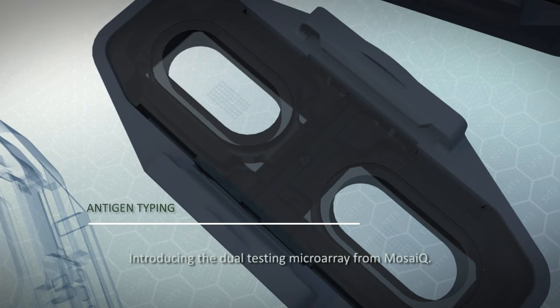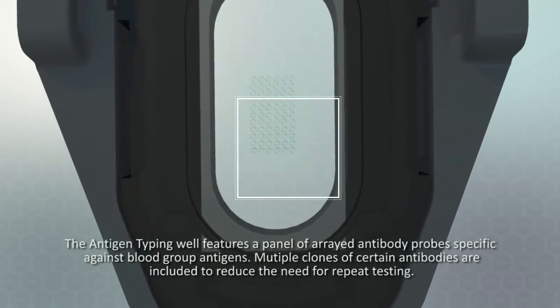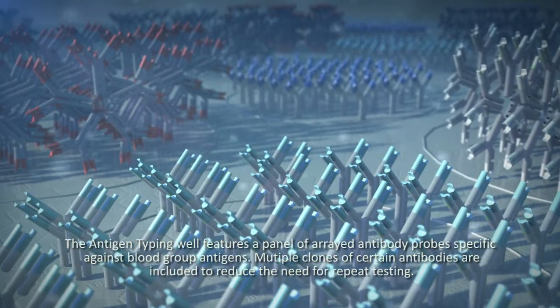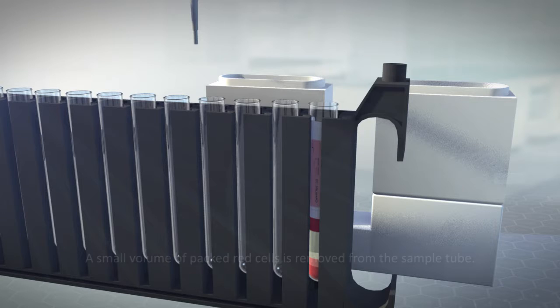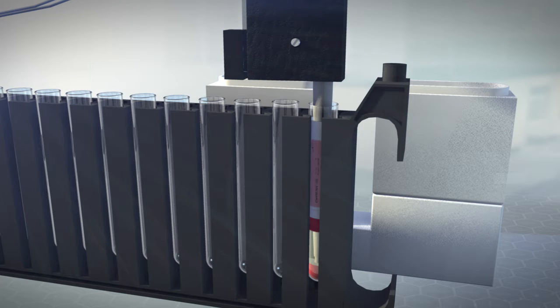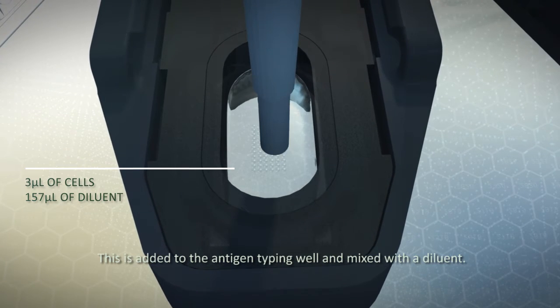Introducing the dual testing microarray from MosaiQ. The antigen typing well features a panel of arrayed antibody probes specific against blood group antigens. Multiple clones of certain antibodies are included to reduce the need for repeat testing. A small volume of packed red cells is removed from the sample tube. This is added to the antigen typing well and mixed with a diluent.